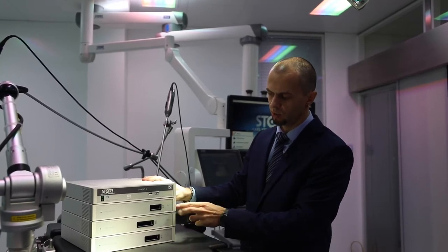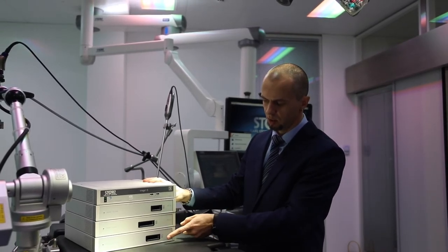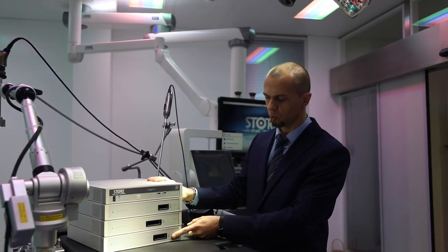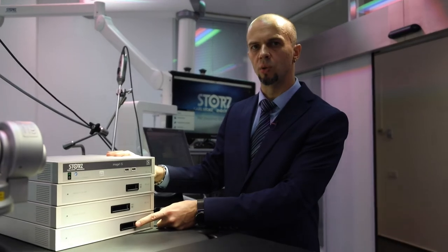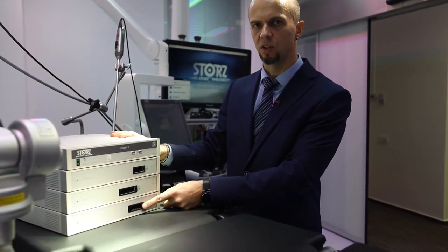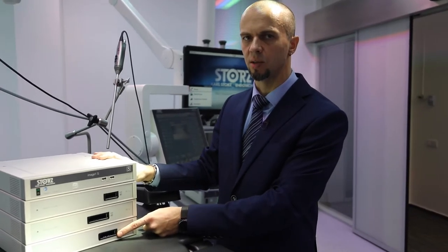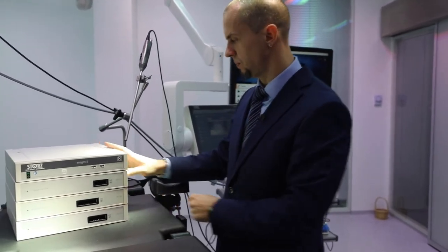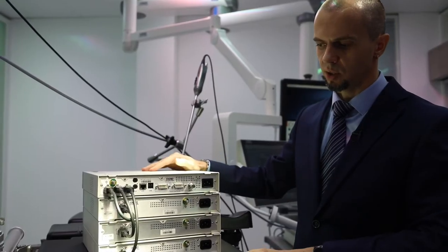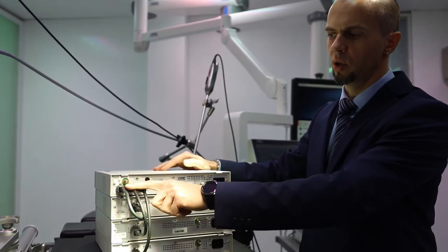Трёхчиповые стандартные головки, гибкие эндоскопы плюс одночиповые стандартные головки и 3D-видеолапароскопы. Обратите внимание: несмотря на то, что разъём унифицирован и такой же, как у 3D-видеолапароскопов старого поколения 26604, сюда они не подходят — система с ними работать не будет. Только специальные ImageOne S 3D-лапароскопы TipCam ImageOne S 26605 AA/BA. Теперь наша система сзади выглядит вот так — все три линк-модуля задействованы.